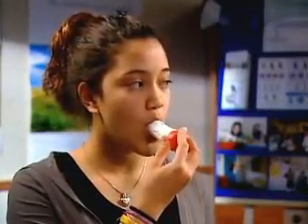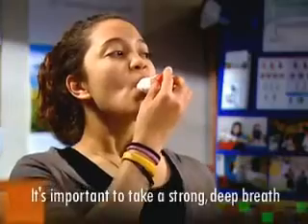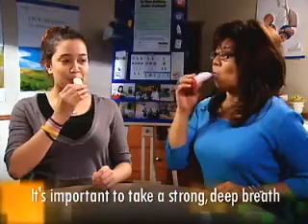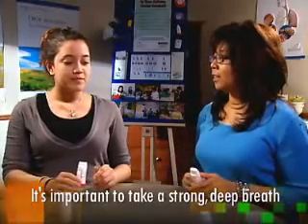When administering the medication, it's important to take a strong, deep breath. Only a strong breath will generate the energy required to spin the device's turbines and release the medication.